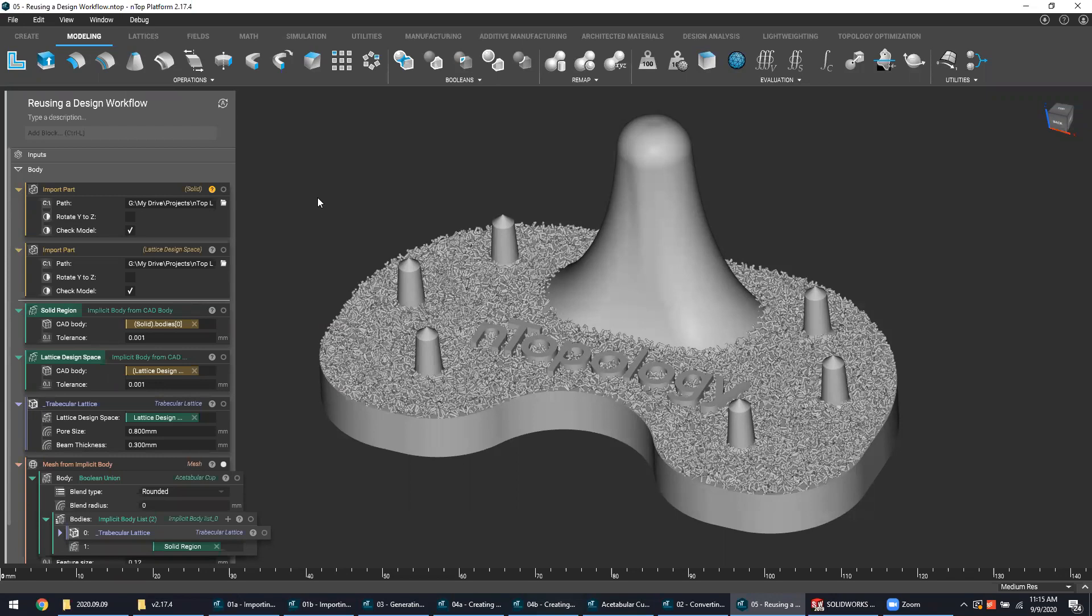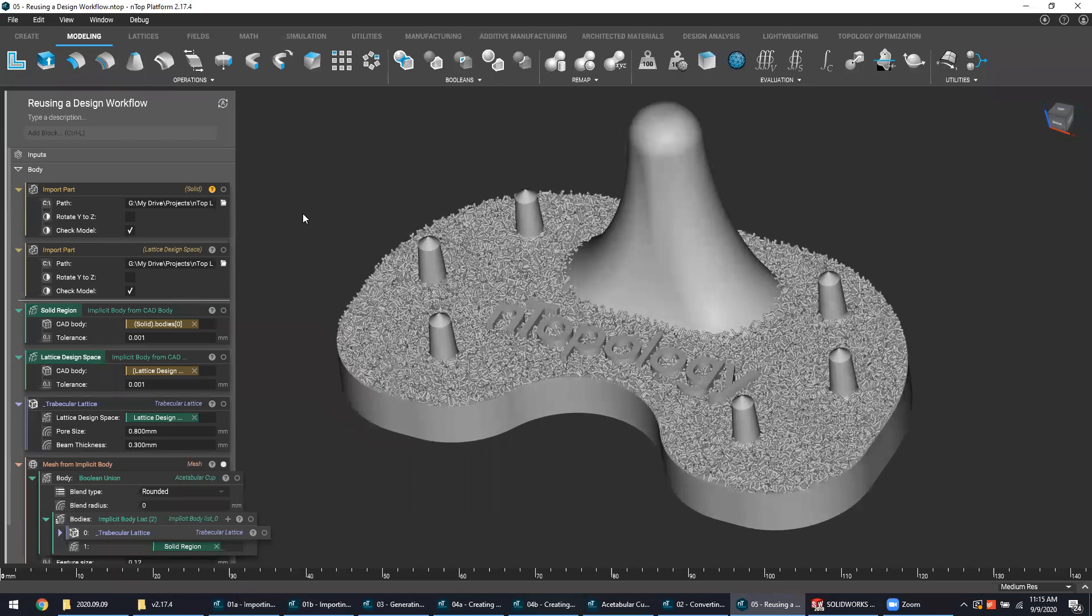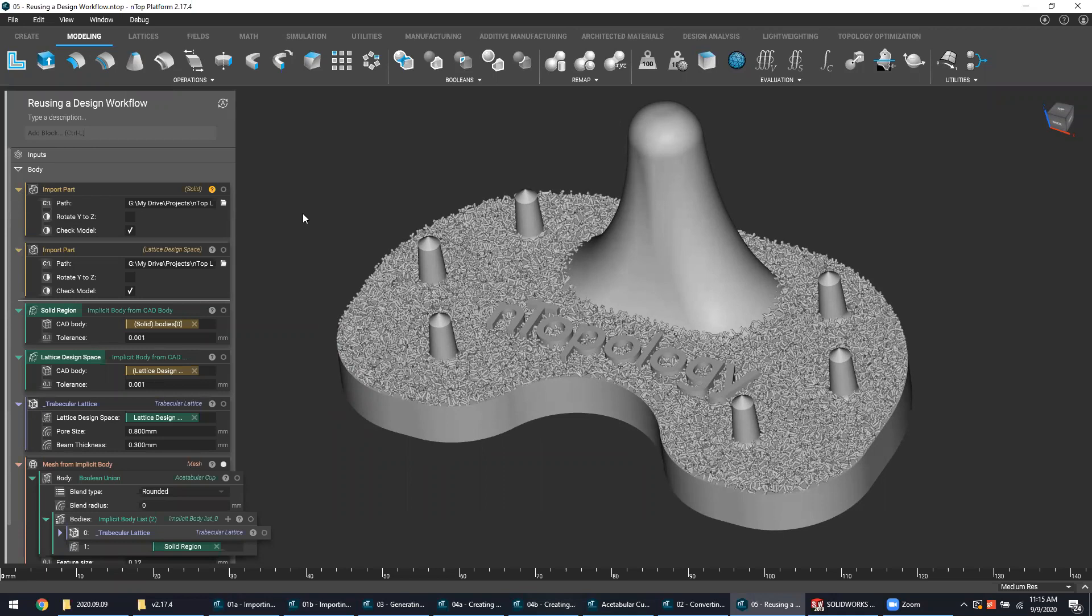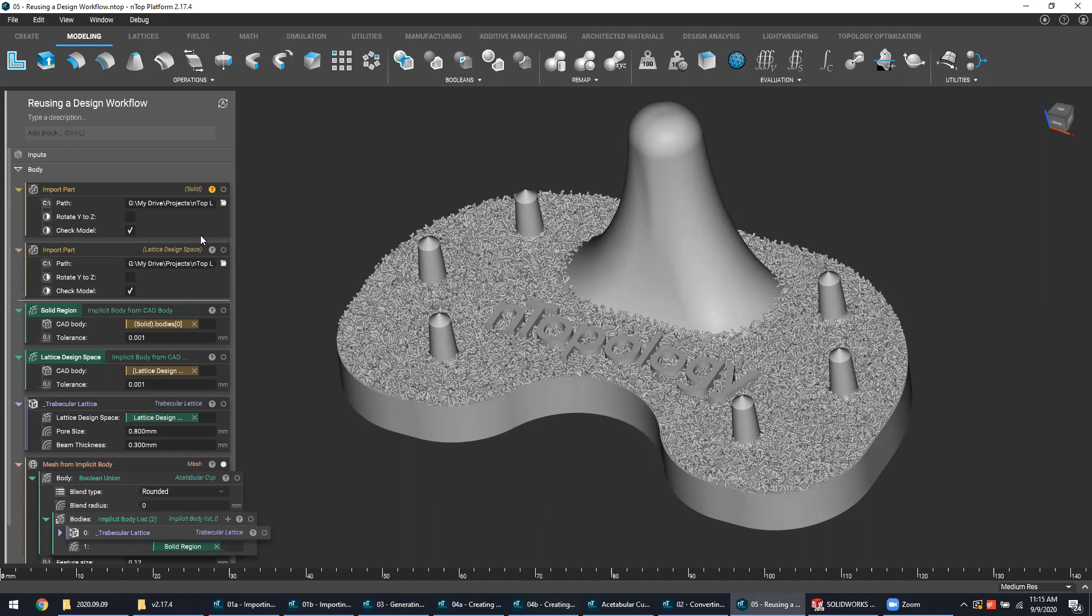Obviously, what I've shown you today is not intended to be a be-all and end-all solution when it comes to designing osseointegrative lattices for your medical devices. There are many ways to go about this within NTOP platform, and this is just merely one example with one structure on a handful of designs. But this has just been a showcase of what NTOP can offer as a design platform to create these orthopedic design solutions that work for your specific parts and your specific product lines.